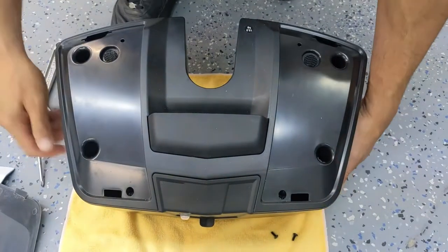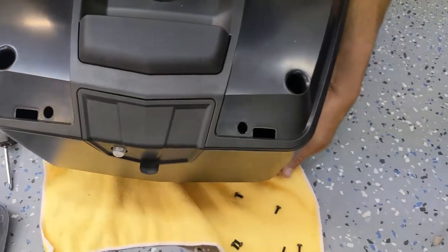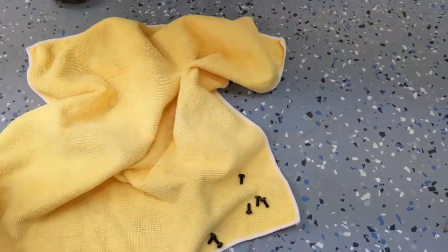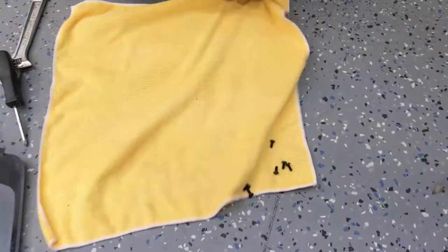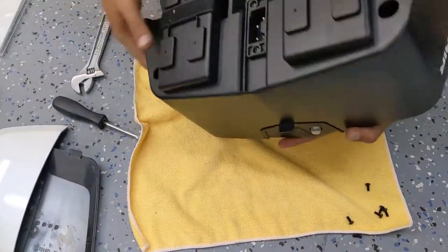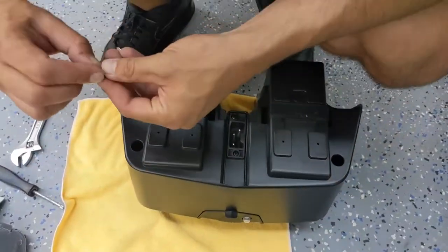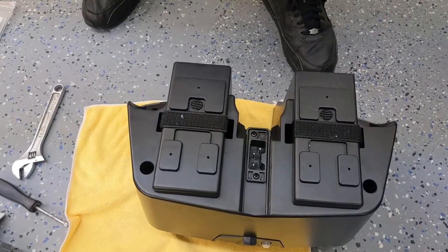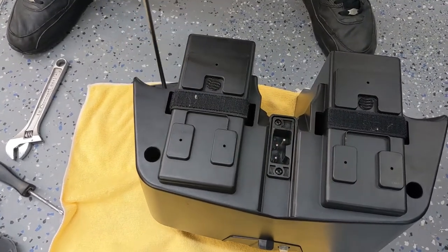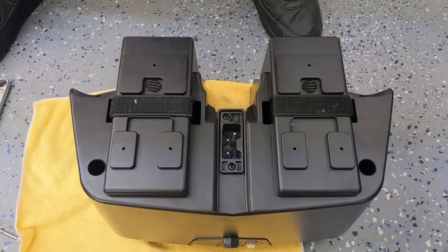As you can see, it's very straightforward — a very easy process. The only thing you really need is a screwdriver and a pair of pliers or a socket wrench if you have one that matches that nut size, but it's probably easier if you just use the wrench like I did. We're going to fast forward through tightening the screws, and at that point it will power the unit back on to show you that it's working as intended with the new batteries.